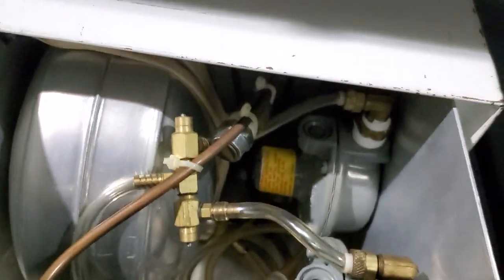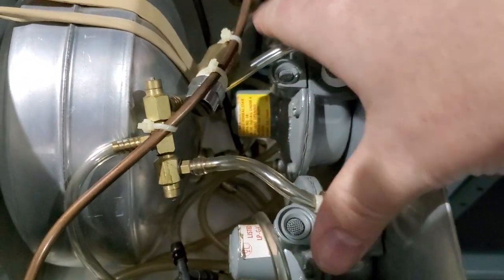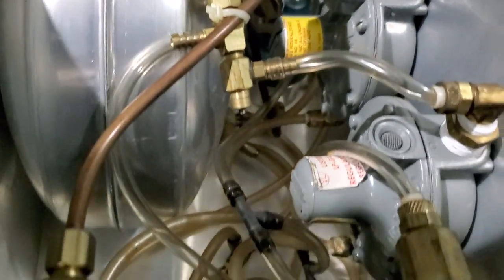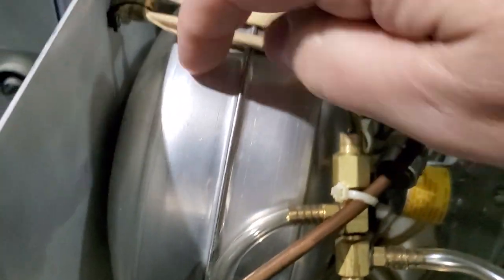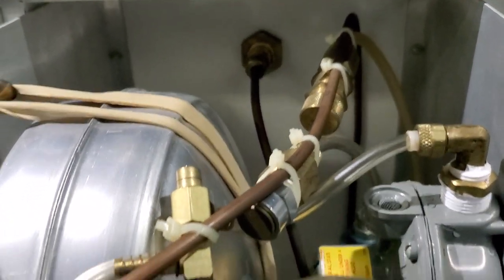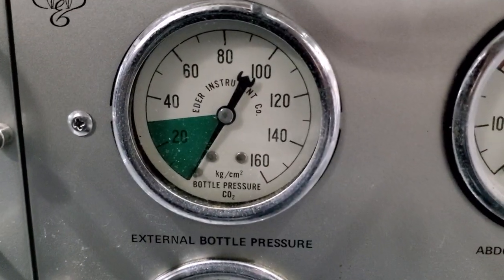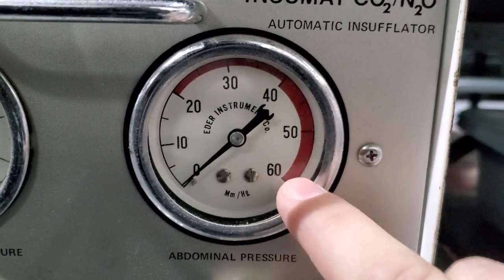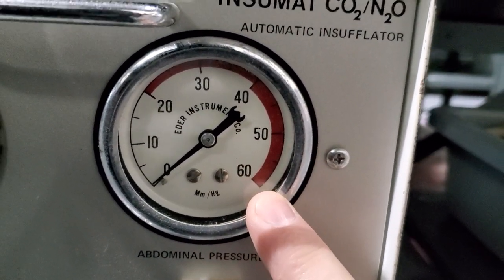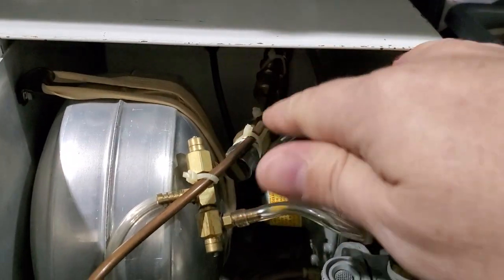Let's see inside it. Way down there in the back there is a regulator — you can see it down there — that regulates your bottle incoming pressure. Then you have a high flow and low flow regulator up here that adjusts the outgoing pressure, and we have a reservoir in here. It's retained by rubber bands. You can see all the connections behind each one of the gauge sets. The gauges are still in excellent condition. You can see bottle pressure, and this one here is your patient pressure — 60 millimeters of mercury. I assume that one of those lines on the inside was probably a safety valve.